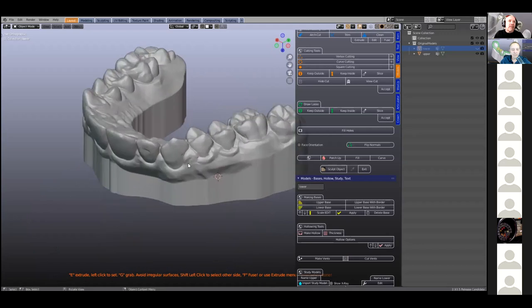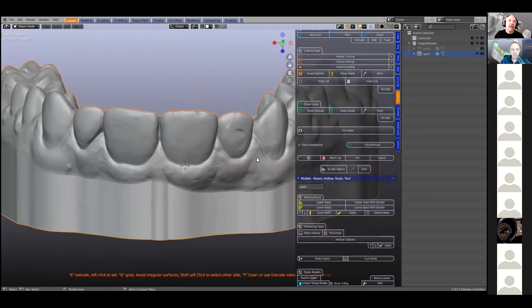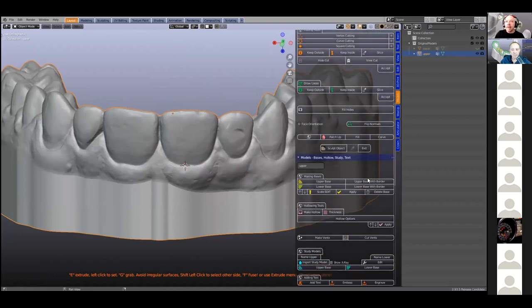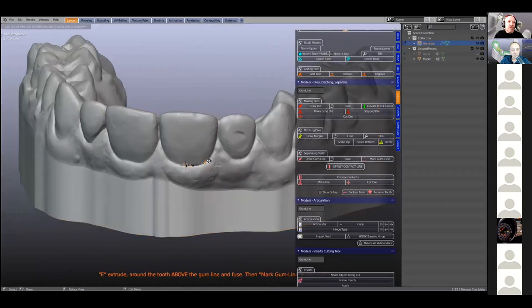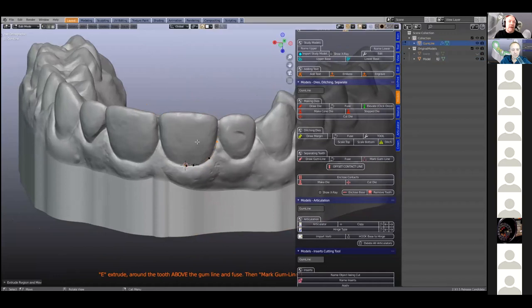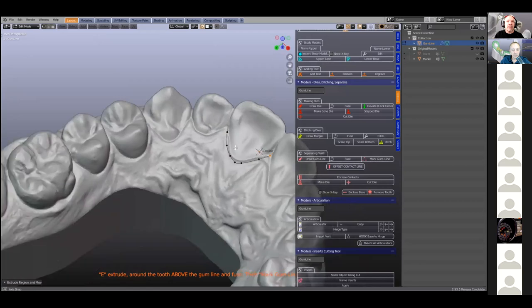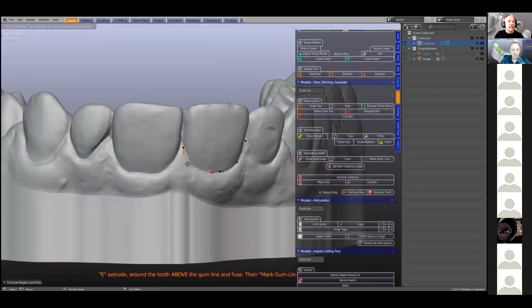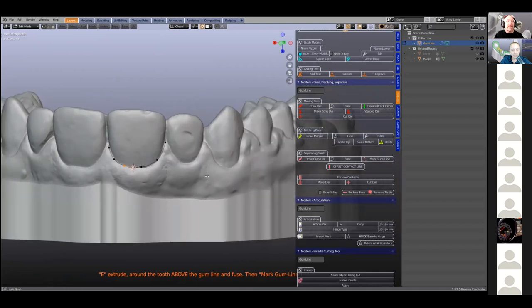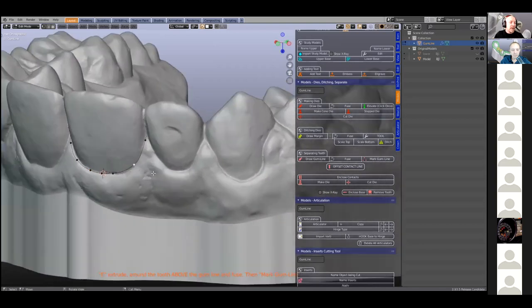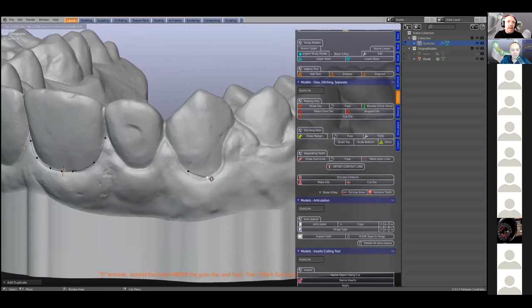So what I'm going to do is we're going to engage in the cutting procedure. This takes a bit of time, but I have saved a file. Just to demonstrate, I'll do a quadrant. In the model designer here, we're going to go draw gum line and then we're going to extrude this. Now we're going to do a few teeth at the same time. We're going to go all the way around like this, fuse this on the other side, and do the gum lines. I'm going to take this one, shift D to duplicate it. If I go extrude, it comes out.